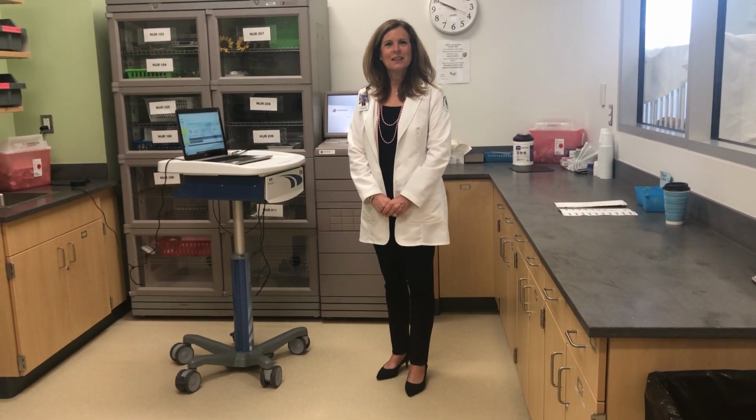Hello, I'm Toni Solans. I'm the simulation coordinator here at Oakton Community College. And what I'd like to do today is give you a brief introduction of our Pyxis 4000 med station.